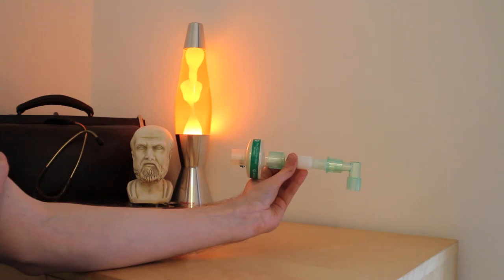During mechanical ventilation the filter is in place to ensure that the air remains clean.